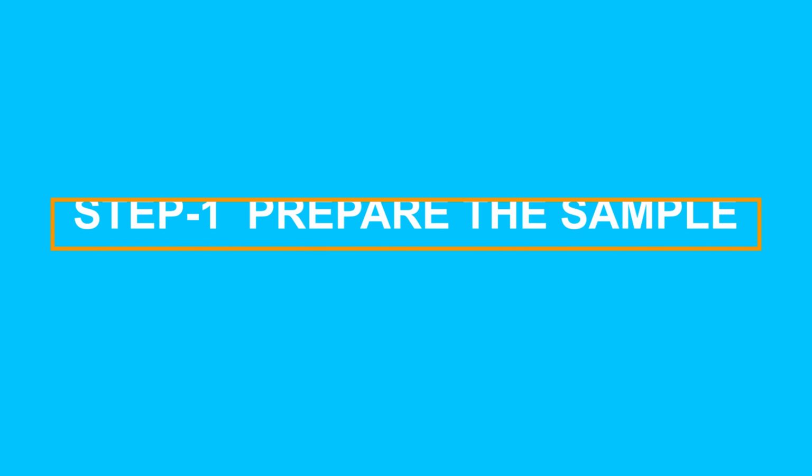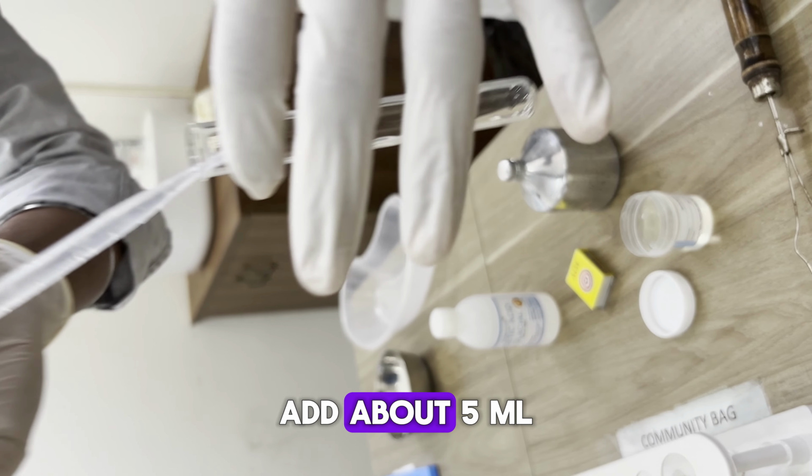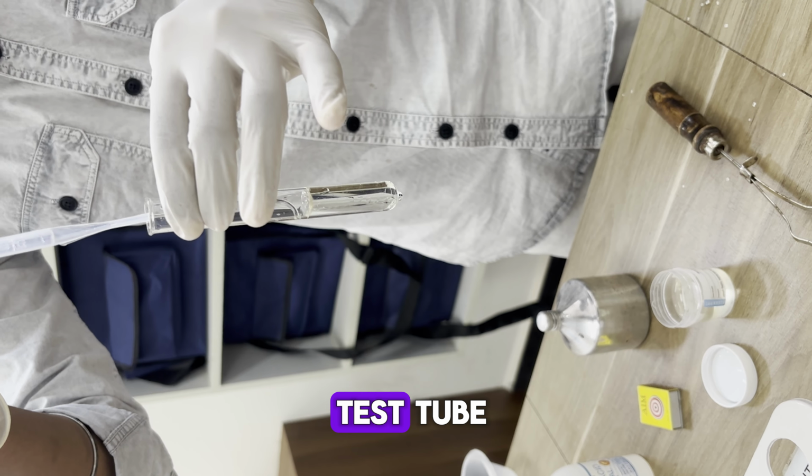Procedure: first, prepare the sample. Take a clean test tube. Using a dropper, add about 5 ml of urine into the test tube.